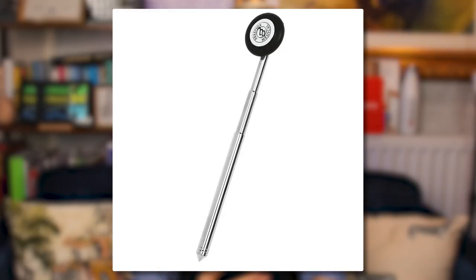The next one is the Babinski hammer, and you'll notice that this one looks extremely similar to the Queen Square hammer, just with the head sat at 90 degrees. But another major difference is that the Queen Square hammer has a flexible handle, whereas the Babinski hammer has a rigid handle.